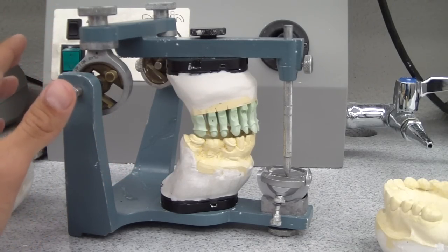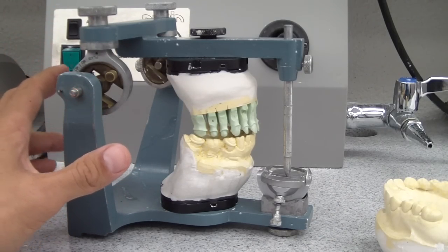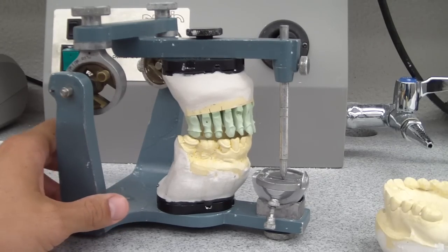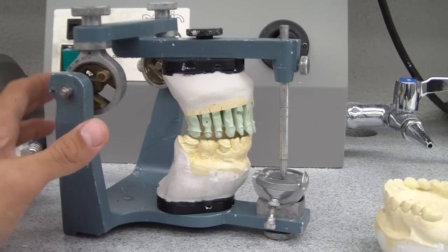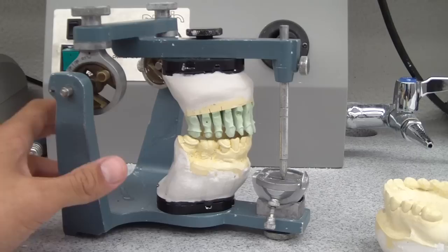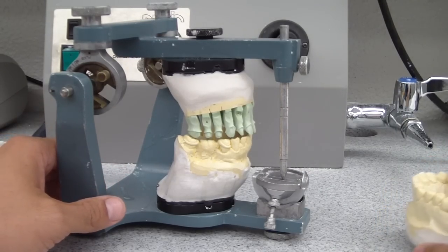What I want to talk about right now is your incisal guide table. This is a great way to finally figure out when do you use these custom incisal guide tables? Are they ever useful? What are they?